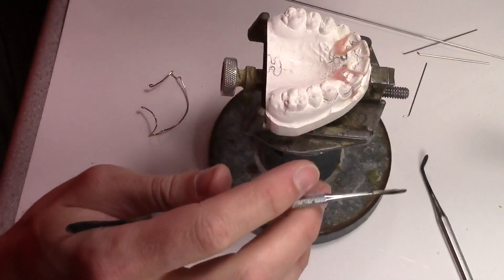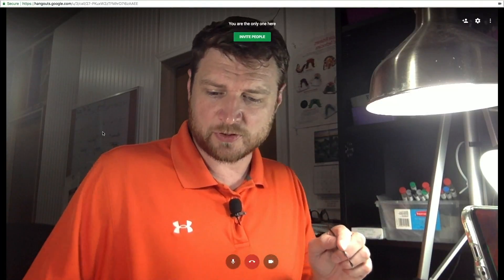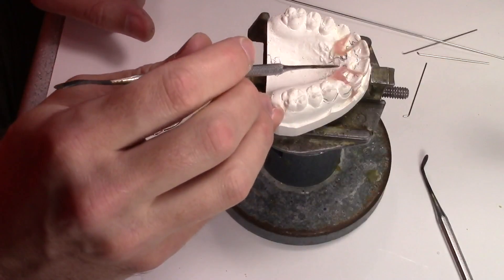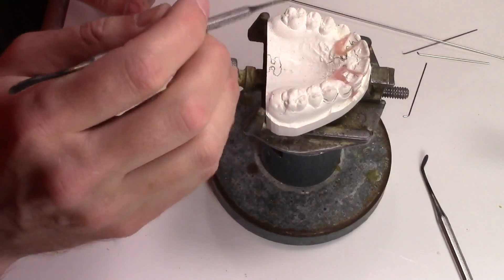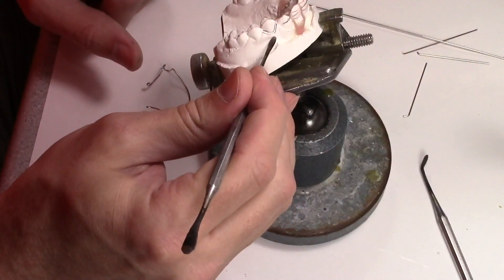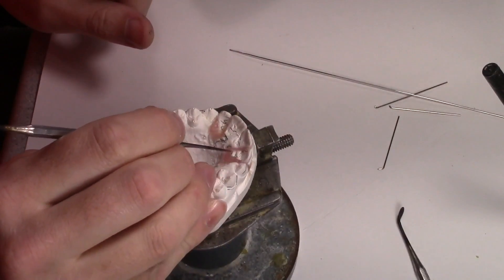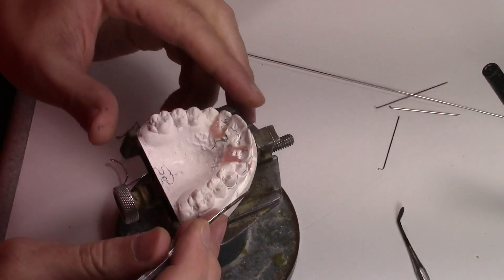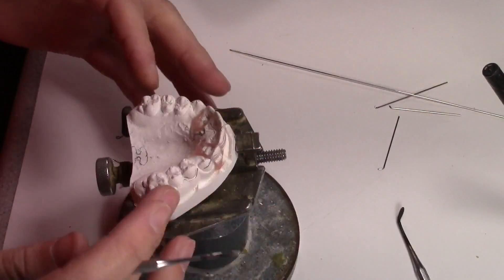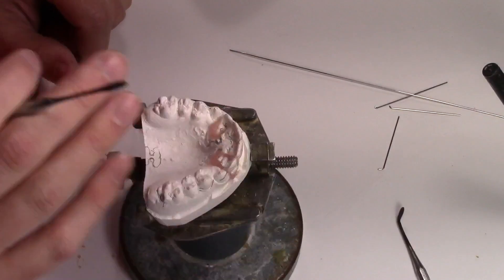What I usually do on these spring retainers is build the internal spring first. That way I can do my waxing. But since this one has soldered C's, and soldering is right here, if I have anything waxed out right here — which is where I usually put my wax — it's going to melt all that, so it'll be all lost cost. So I like to build all this first, solder it, and then build my spring on the inside.